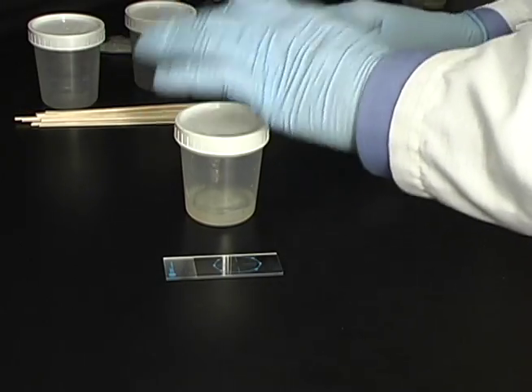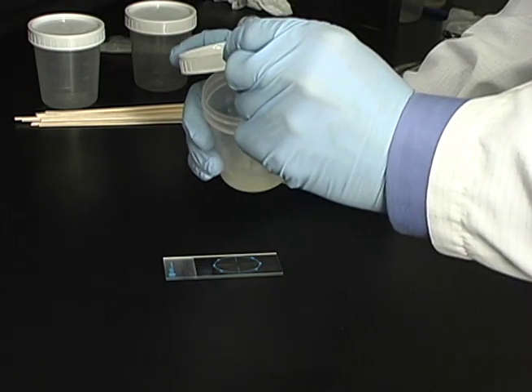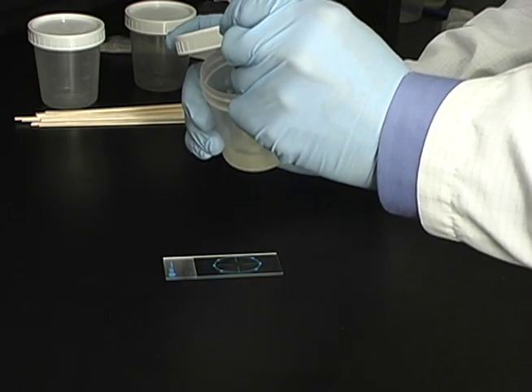If the specimen is watery, use a transfer pipette instead, selecting the thicker particles in the specimen, as this is more likely to produce a positive result.